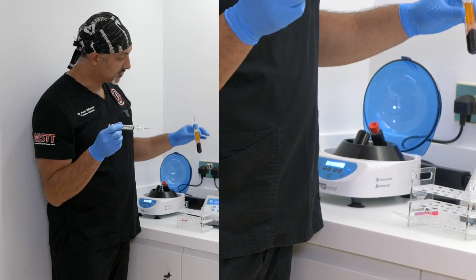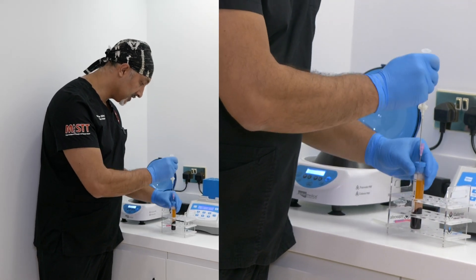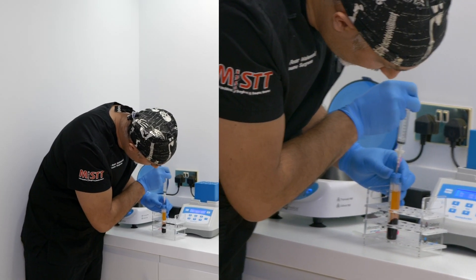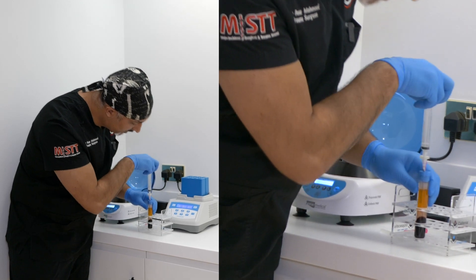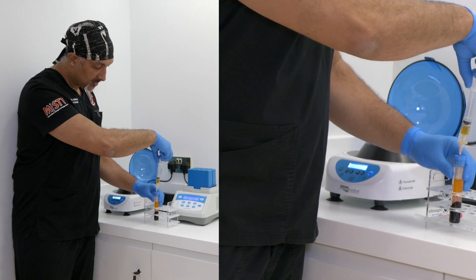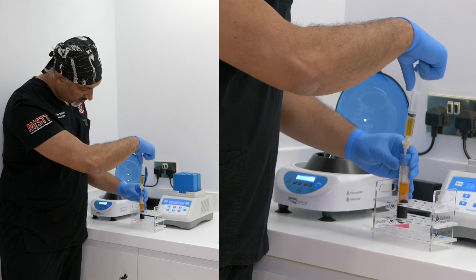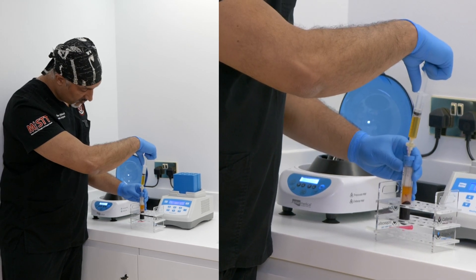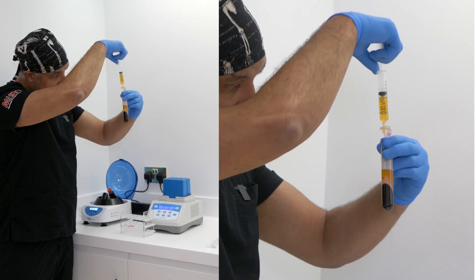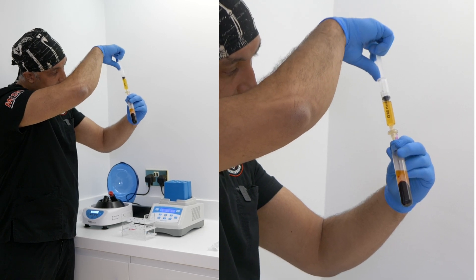With a 22ml tube there should be about 12 to 13mls in there, so you leave it in — it gives you one free hand — and you place this carefully down as far as you think you need. For this particular one you're going to have to take off quite a lot of the plasma. If there's about 12ml in there, you're taking about 10ml off, leaving two behind. You can just tip it a little bit if you need to, just to make sure you get it all.